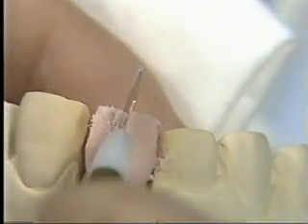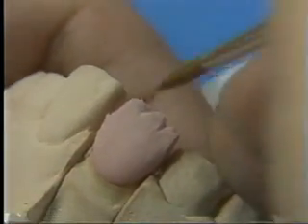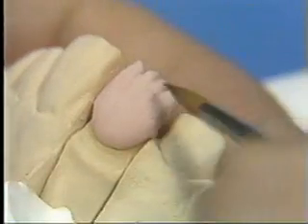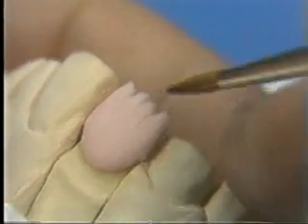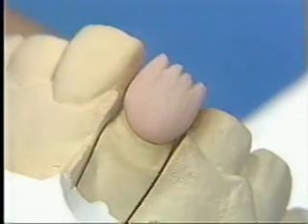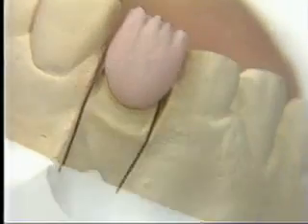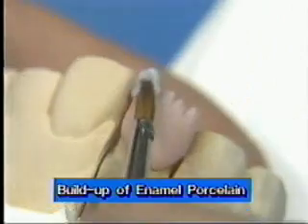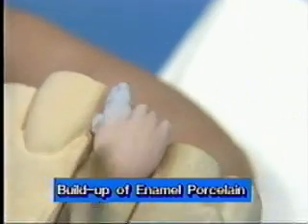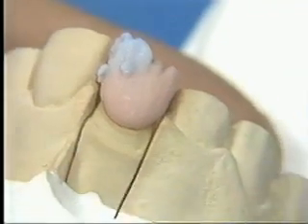Form the mamelon figure. Make the tip of the wet brush sharp and smooth out the mamelon structure. Then check again the proximal surface and the incisal 1/3 on the labial side for sufficient space for the enamel. Build up enamel porcelain on the cutback area and ensure approximately the same shape and same size as that of the symmetric tooth.